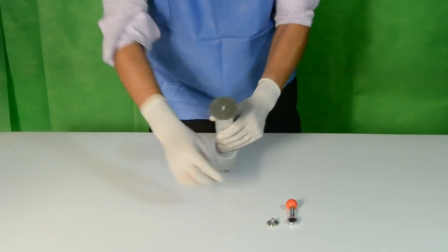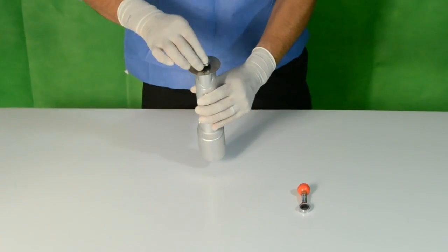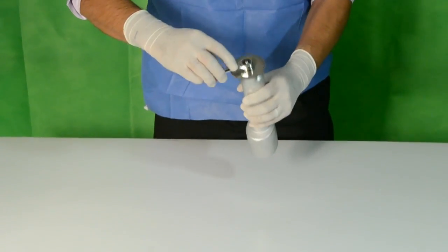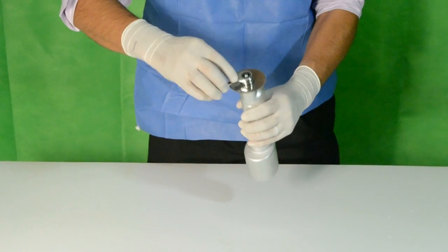The clamping screw is placed, bolting it down by hand. The pressure wrench has a slack movement set to make the serrated blade gripping easier.